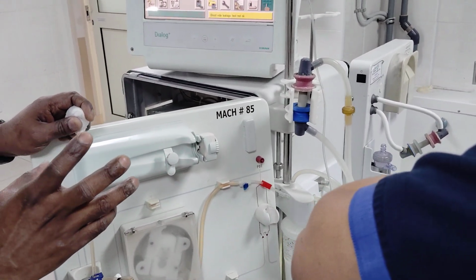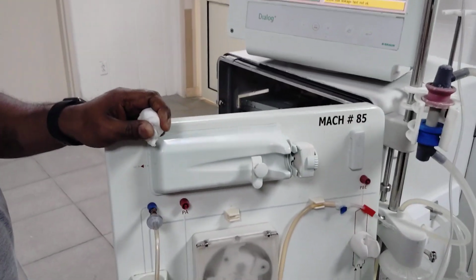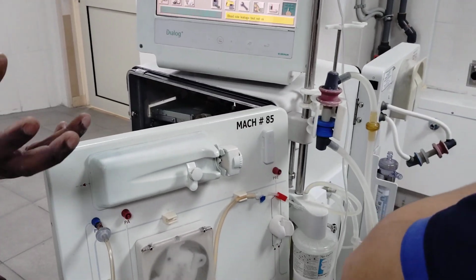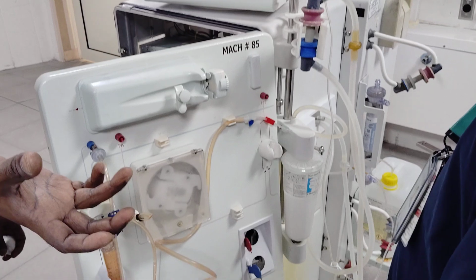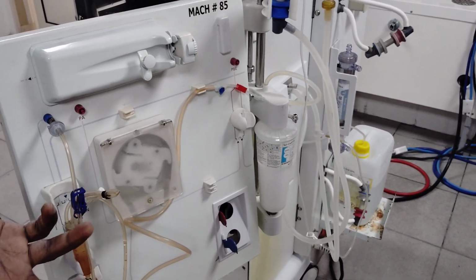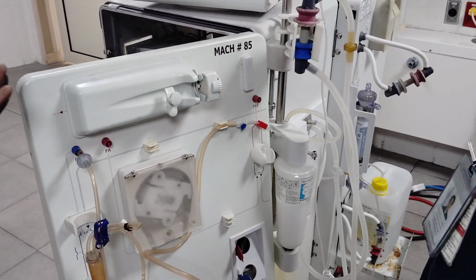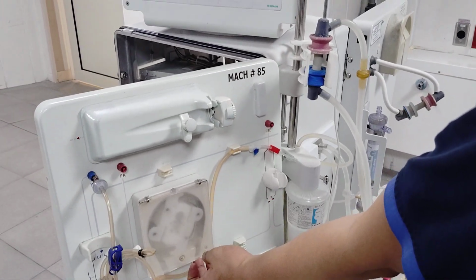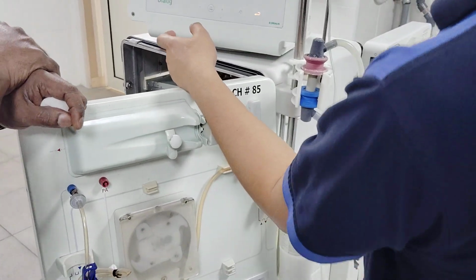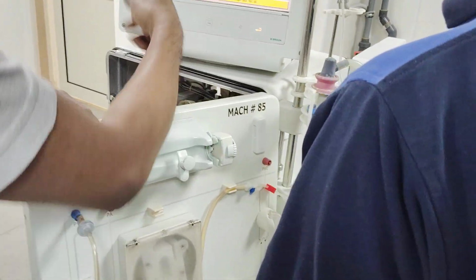If, suppose, the doctor has prescribed HD dialysis, can the same patient go to HDF or not? It's not necessary, as per the doctor's orders. They have to do it because HDF is needed. Some patients want more clearance in their removal. More clearance is needed, and for that reason they will recommend HDF, hemodiafiltration. But not all patients need it. By default, HD will start. But the HDF machines have an option for HD. So acknowledge. Hemodialysis. No, that message will go away when you remove it.